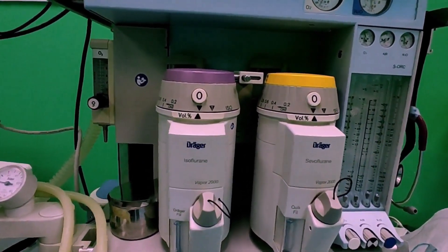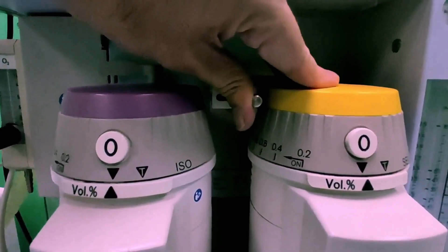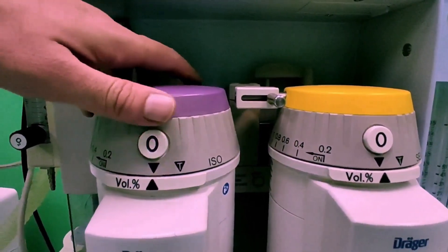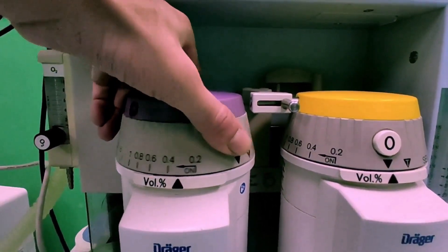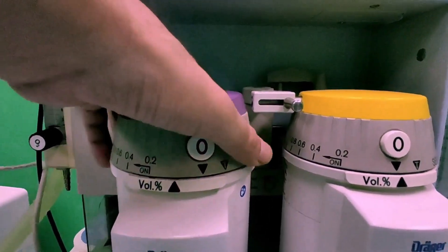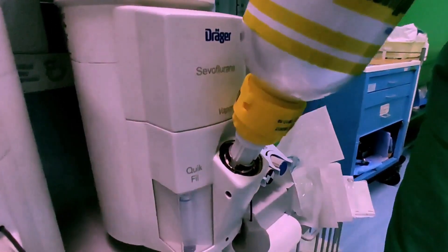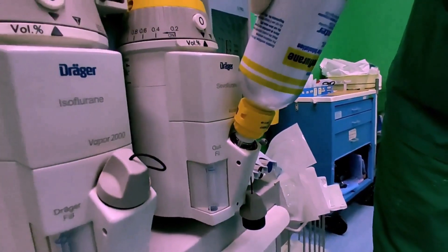Today it's all about variable bypass flow-over vaporizers — that means halothane, isoflurane, and sevoflurane. We will touch on desflurane in a later episode because the mechanics of that particular inhalational agent are quite different.